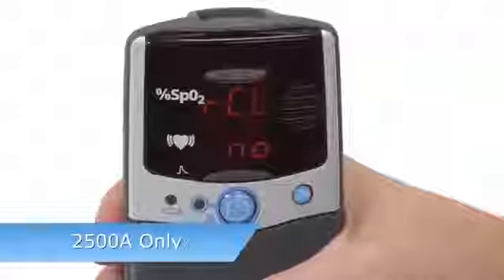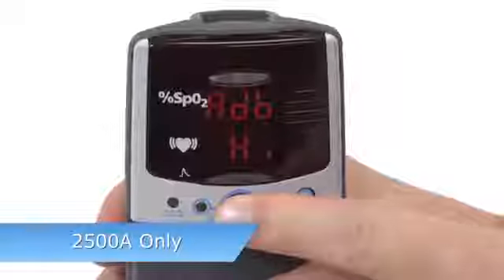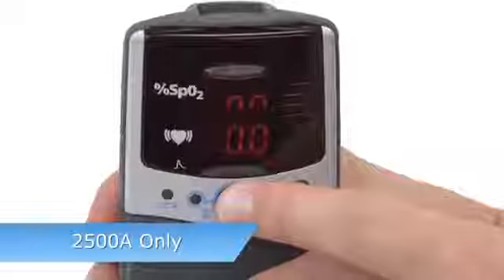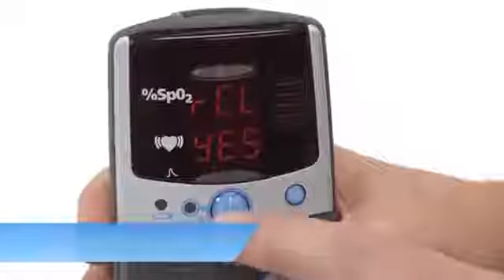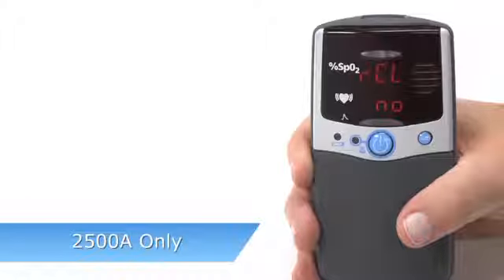For the 2500A model, when you enter setup, the Recall alarm values NO option appears first. Memory clear and date and time settings follow after alarm settings. If you clear the custom alarm settings, the oximeter will return to its default settings. Press ON-OFF to clear the custom alarm settings, or use ADVANCE to select YES to retain the custom settings. If you retain the settings, you will automatically exit setup mode. If you clear custom alarm settings, you can scroll through and reset all values on the oximeter.